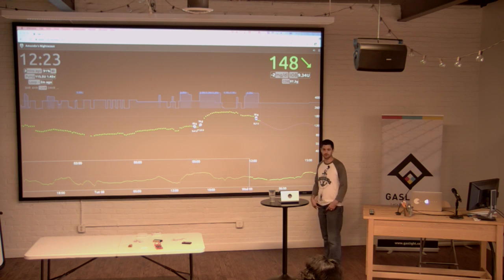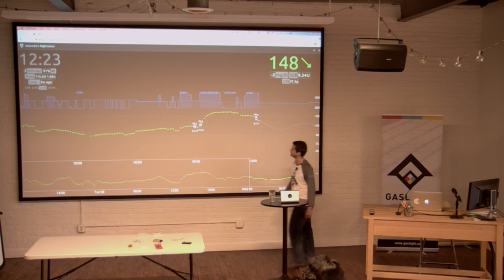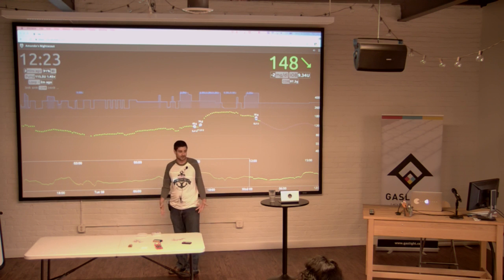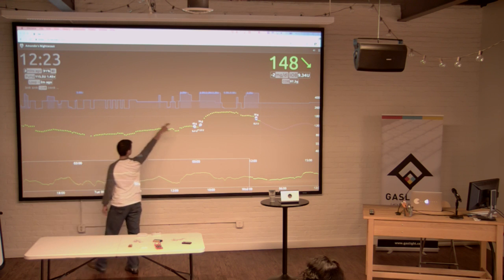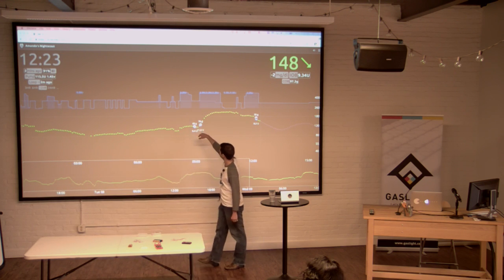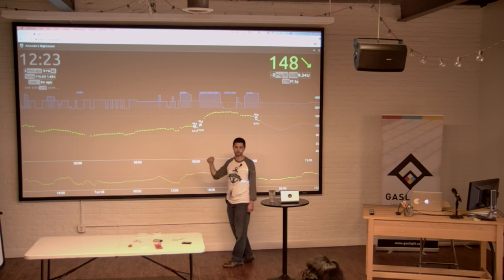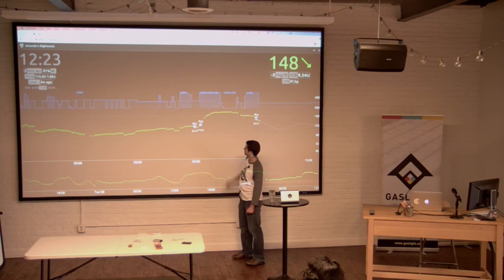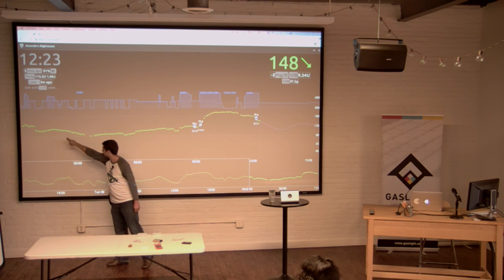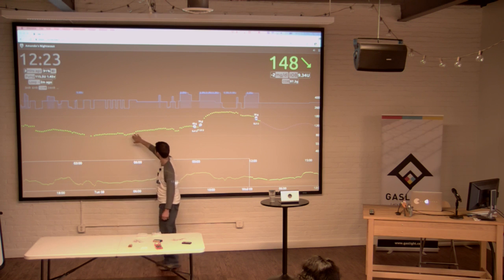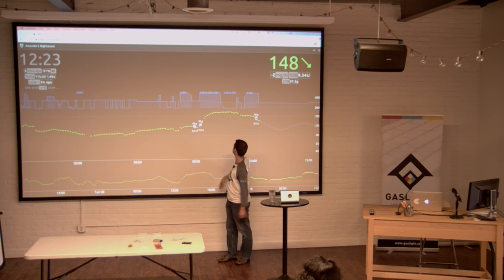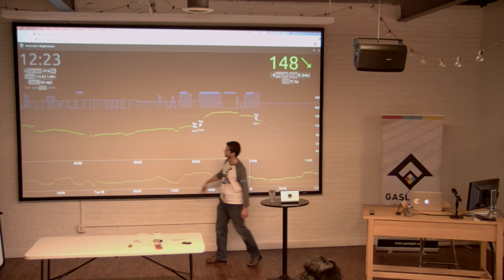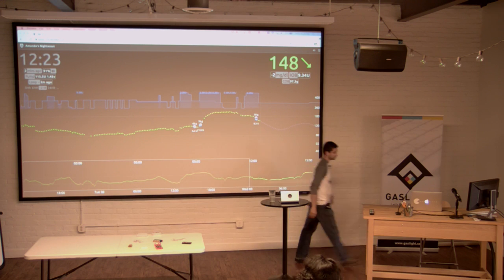This is my wife's current blood sugar and what's going on with her insulin pump right now. She's actually at CVG with the kids watching airplanes take off and land — she's not here, not on this Wi-Fi network, she's out and about. What you see that looks kind of like a cityscape is her basal rate adjustment. You can see 2.25 units — that's the maximum basal rate her pump is set to allow. Each dot is about five minutes. As she goes high the algorithm gives more insulin; as she goes low you can see it drops to zero when it predicts she's going low.